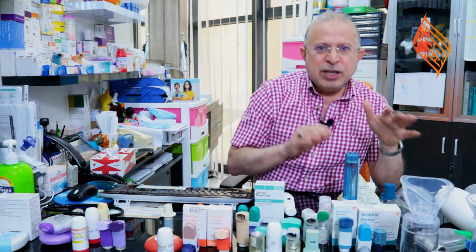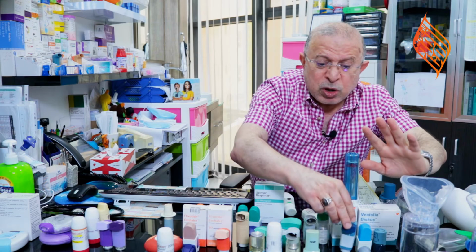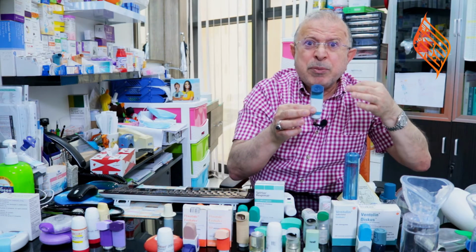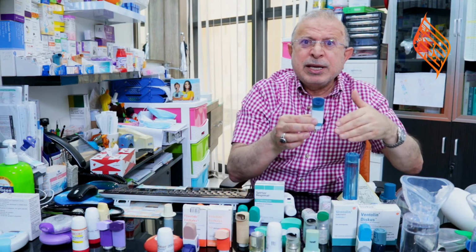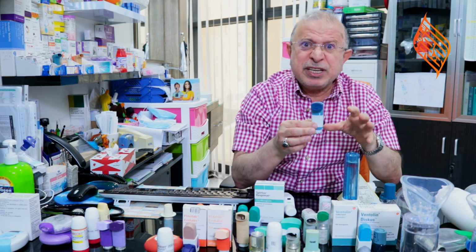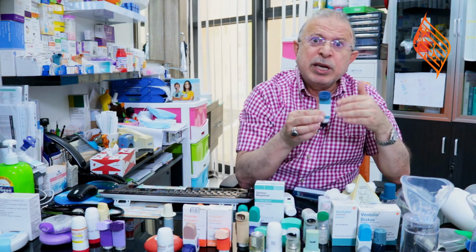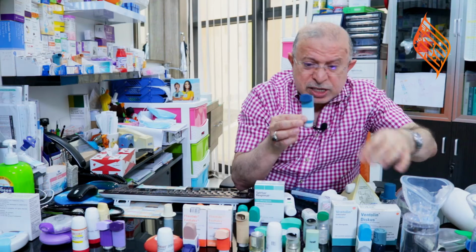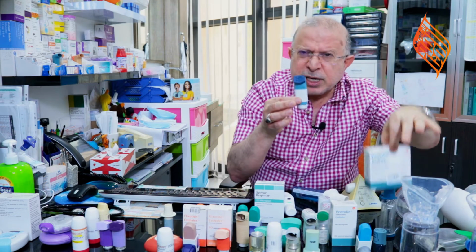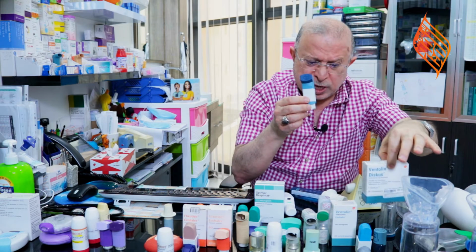How to use them. Dear colleagues, this is the short-acting beta-2 agonist. This is what we are using nowadays, which is the pressurized MDI, metered dose inhaler. Nowadays, we are calling it the Evohaler because we have changed the propellant in them from the CFC to the HFA. Now, this is one type, and this is the other type, which is called the Diskus. Nowadays, these are the two commonest short-acting beta-2 agonist inhalers used in the market.